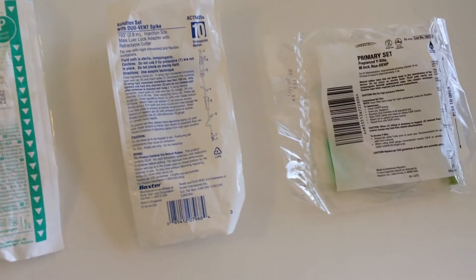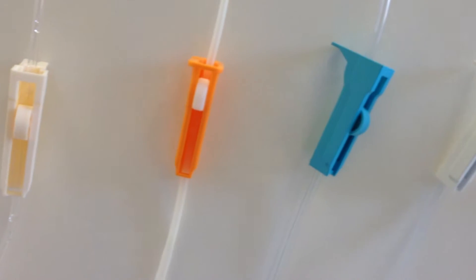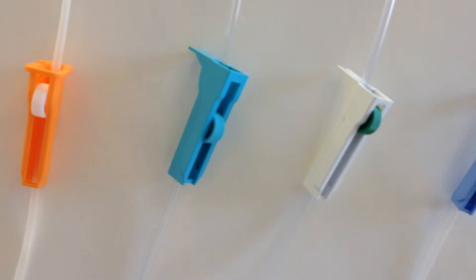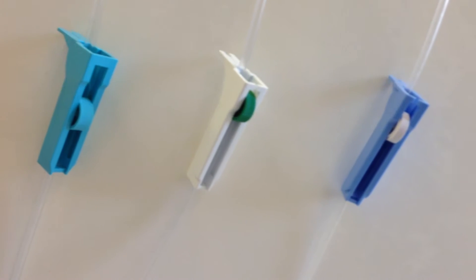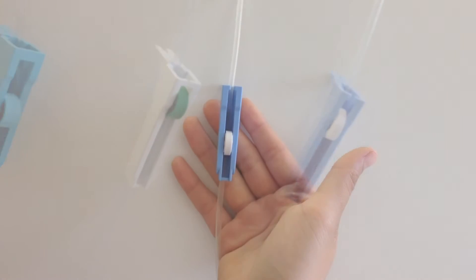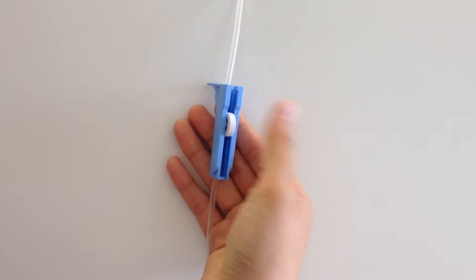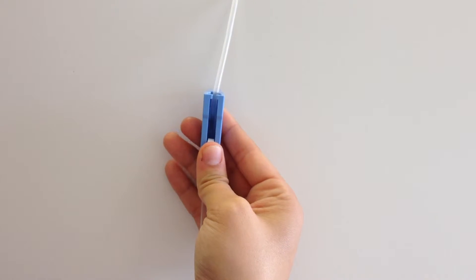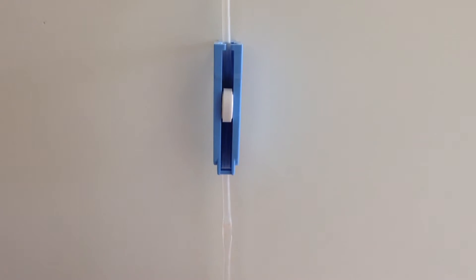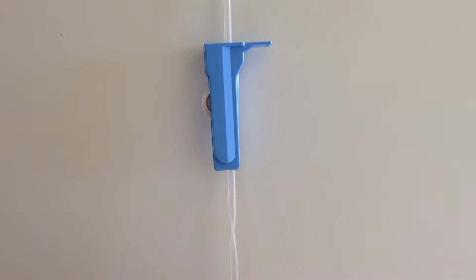Similar to your drip set, roller clamps vary in size and quality. Roller clamps may be imprecise and can relax or slide, changing your drip rate. Making minute adjustments with a roller clamp can be difficult, affecting accuracy. They can also damage or crimp the line, affecting the consistency of your rate.